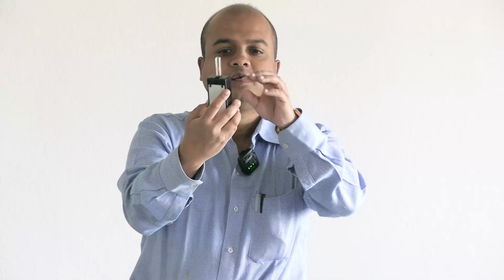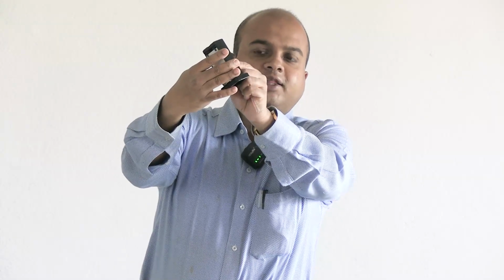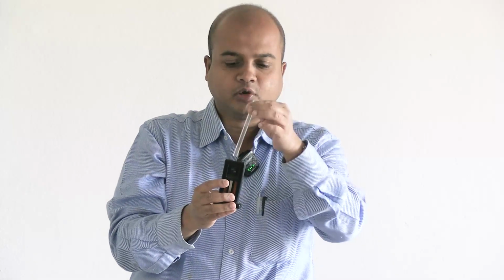The comparator box has 2 fixed, not tubes, 2 fixed fluid-like colored standards. Comparator, this is one of the colorimetric methods, where color will be compared. Similar colors are there on the 2 sides, and in the middle there is a place for placing this tube, just slightly greater than the diameter of this hemoglobin tube, where we can put this hemoglobin tube.